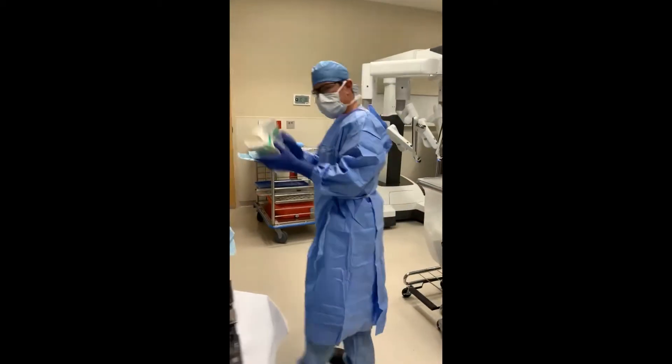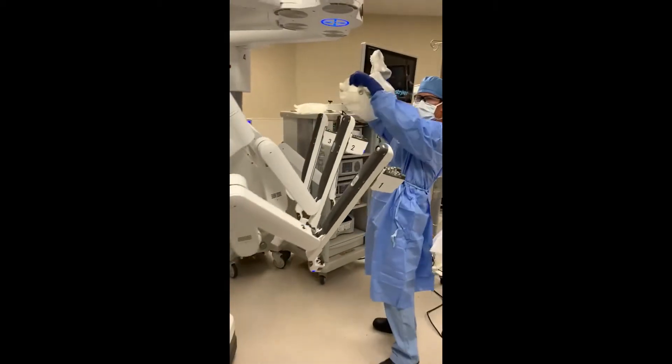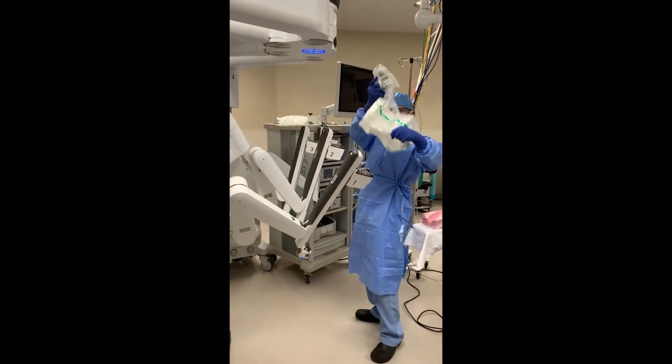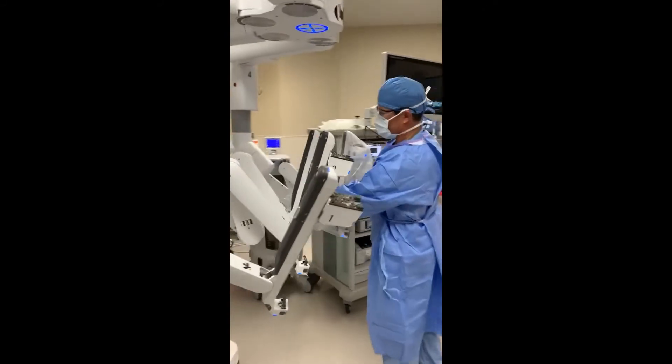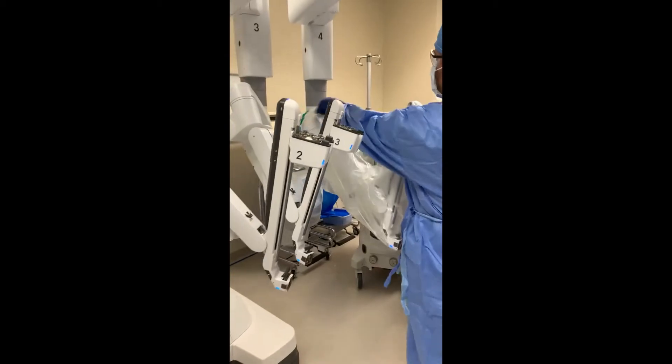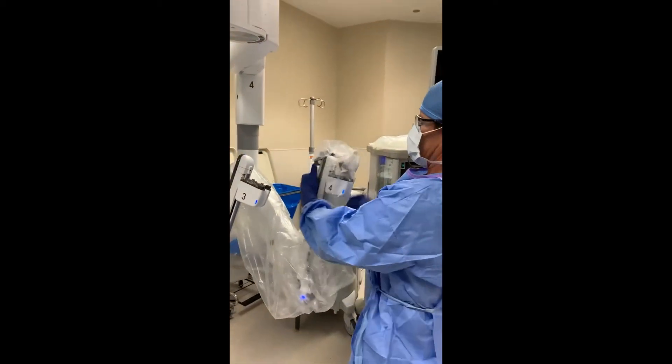So we're just going to move along very quickly right now. You take the top end, bolt here at the end, take all the equipment at the top here, and just quickly roll this down. You don't have to reach all the way up. Just feed it through.